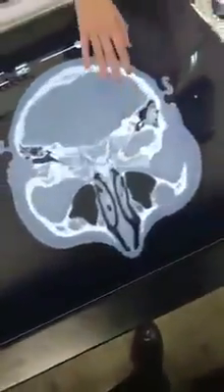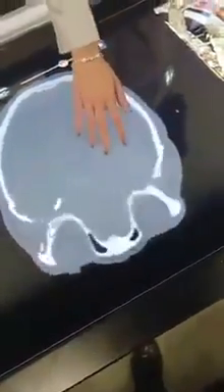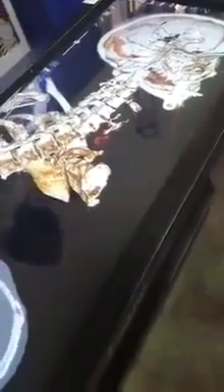What's most interesting to me is you can load in your own patient's CT or MRI scan, and from there you can get a 3D model of what you see. Here we have a post-operative scan of a patient with the brain on view, and this is the actual CT that was provided. You can go ahead and slide through the CT and see exactly where the clips were placed. It's more intuitive when you see something in 3D where the clips were placed rather than just focusing on the CT.